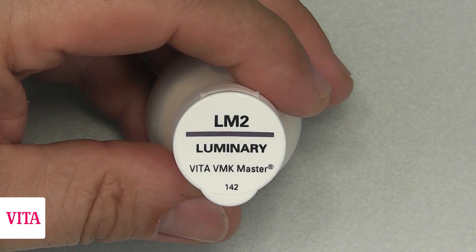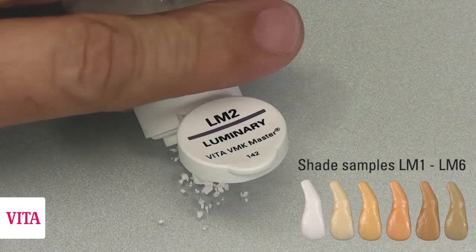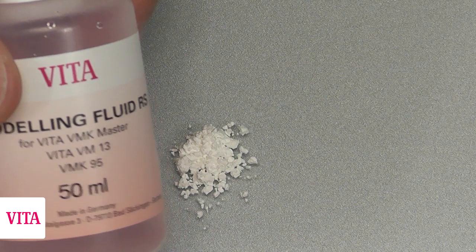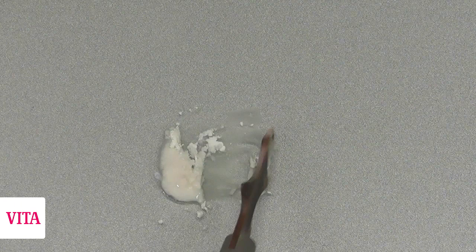Now we start with a luminary firing. In this case we have a 3M2, so we use the LM2. Luminary materials are highly fluorescent and they support the natural fluorescence of the tooth, giving you good control to achieve the right fluorescence in your crown. We mix it with the modeling liquid RS — RS stands for red solution — which enables us to get a long modeling period.